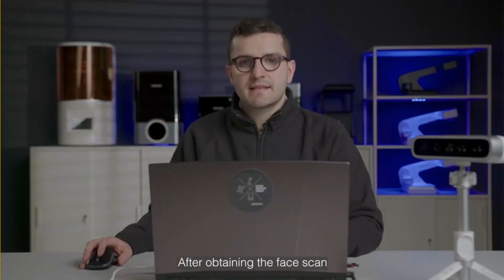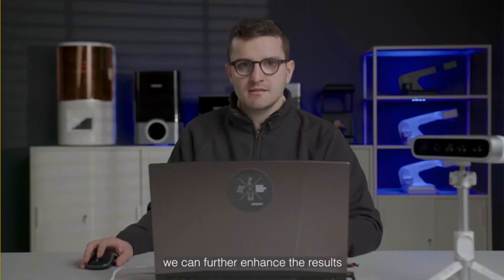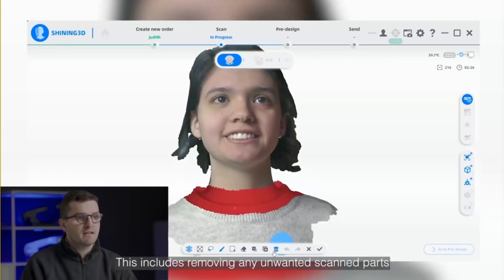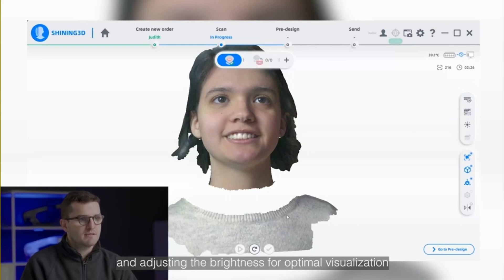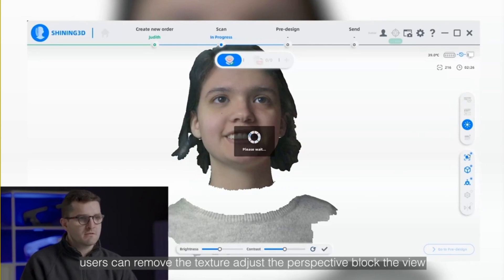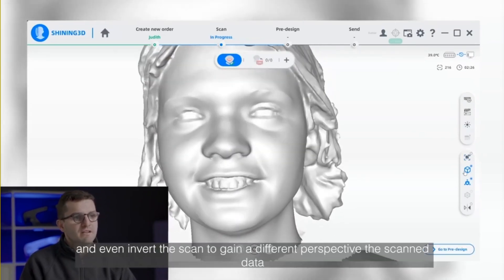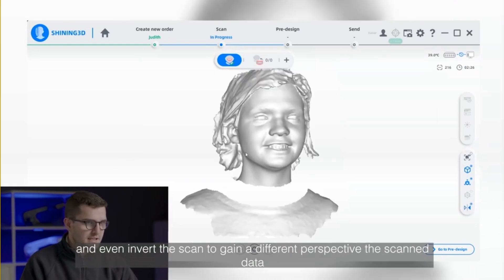After obtaining the face scan, we can further enhance the results by using our editing tools. This includes removing any unwanted scanned parts and adjusting the brightness for optimal visualization. Users can also remove the texture, adjust the perspective, block the view, and even invert the scan to gain a different perspective of the scanned data.